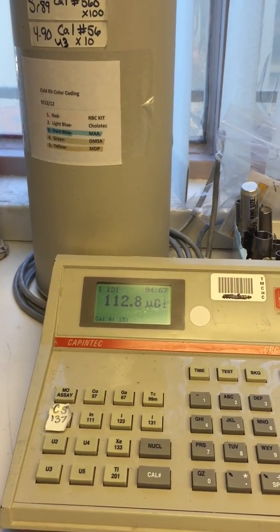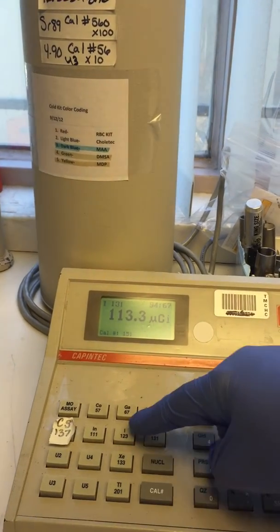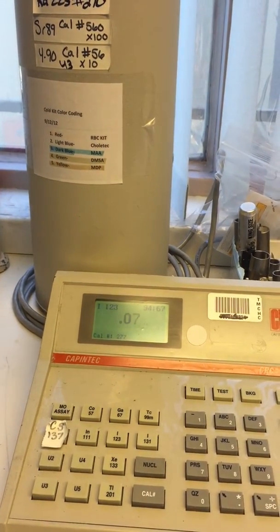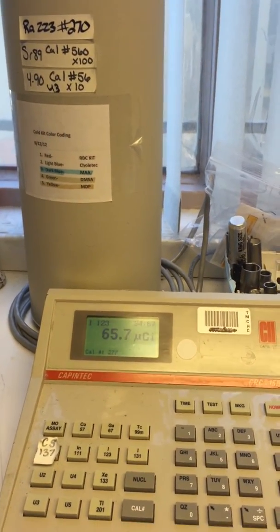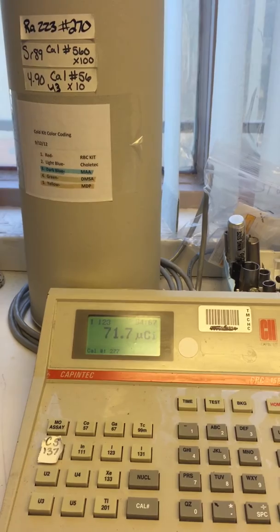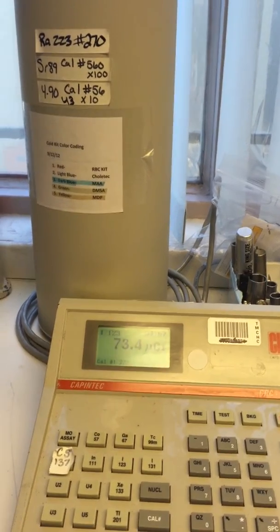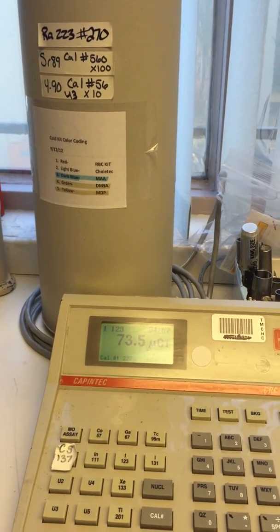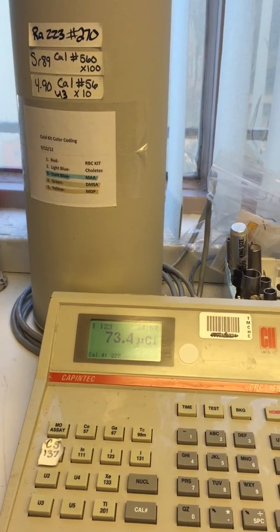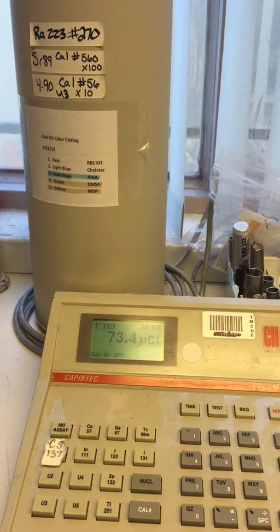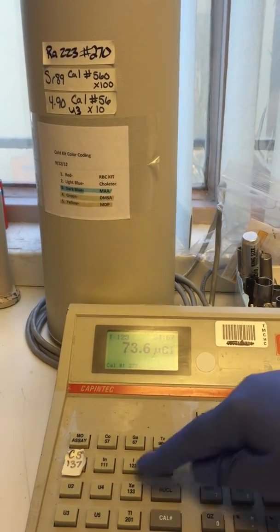And iodine-123 right here. And it takes it a few moments to get calibrated. 173, or 73.